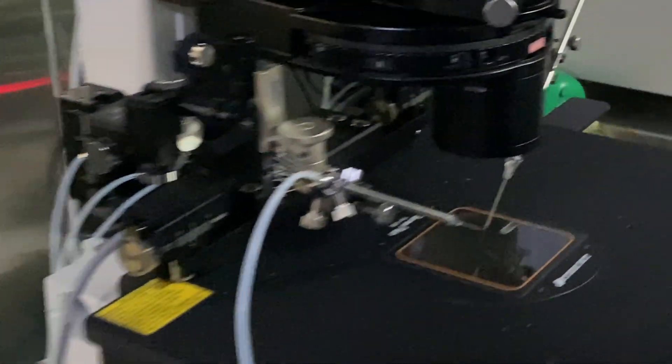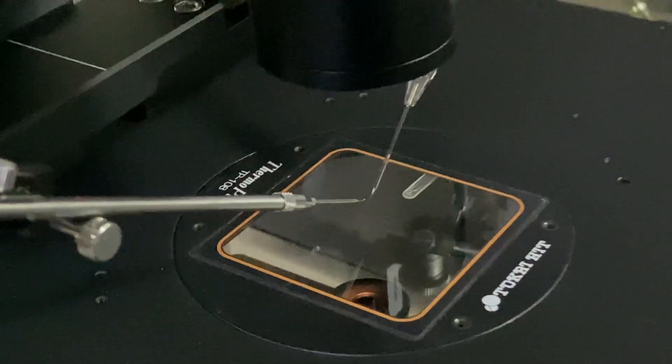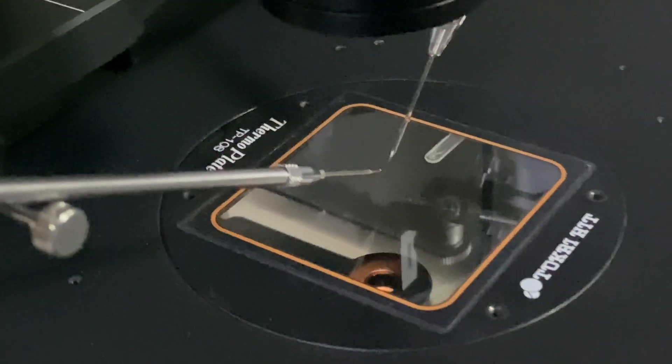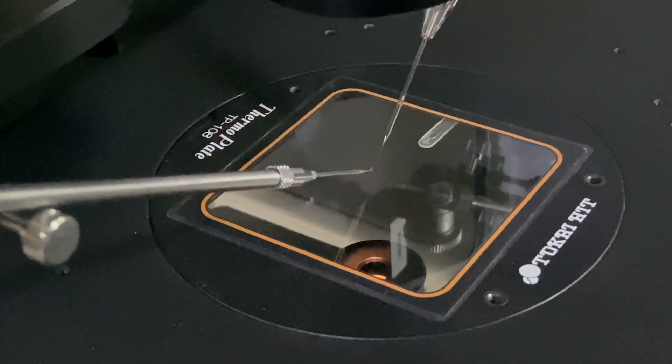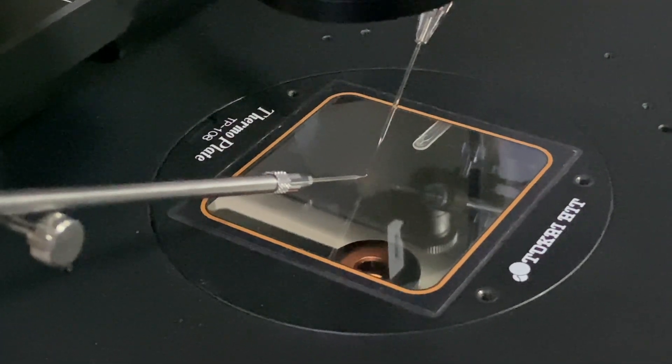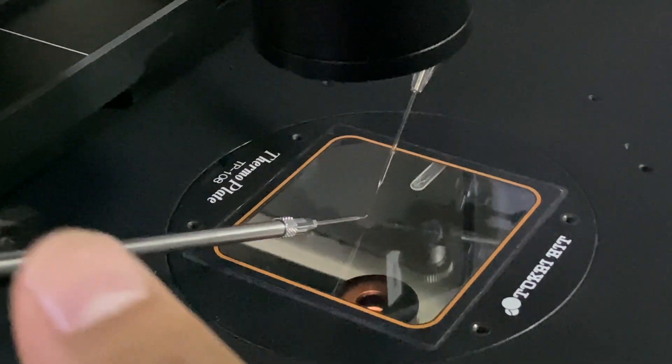Similarly, I will bring this holding needle. So this holding needle, I will drop a little down because it is still very high. So now it is almost very close. Although I cannot show you because it is inside the microscope.